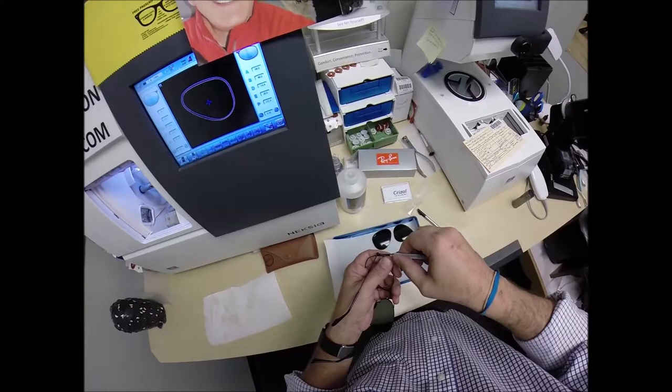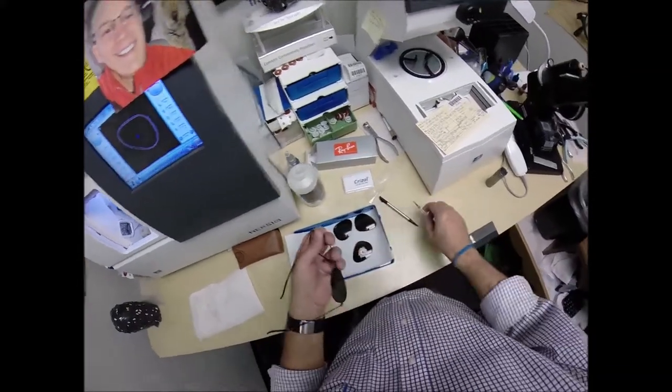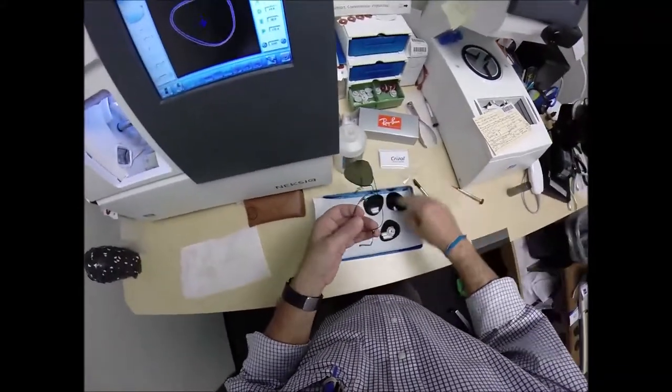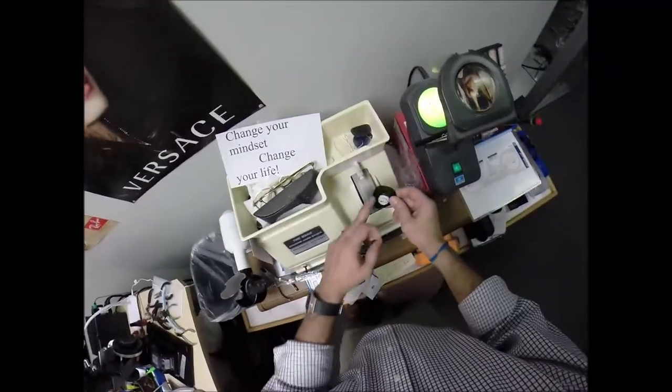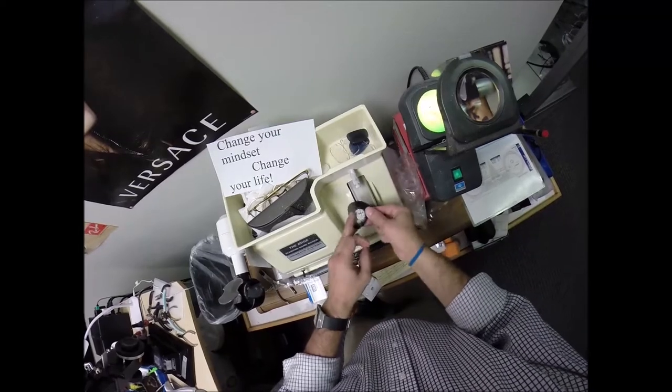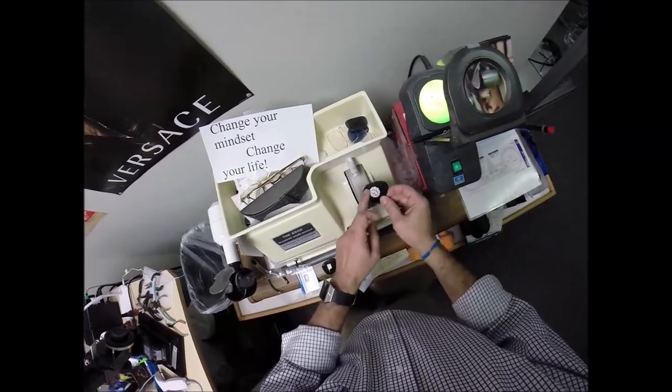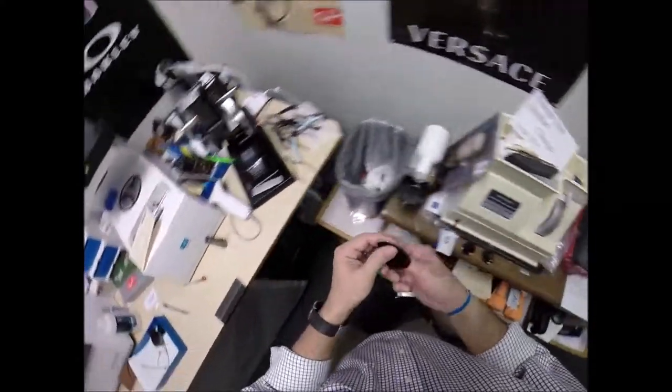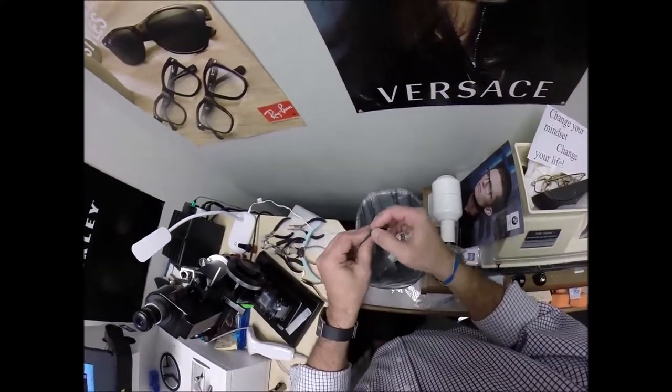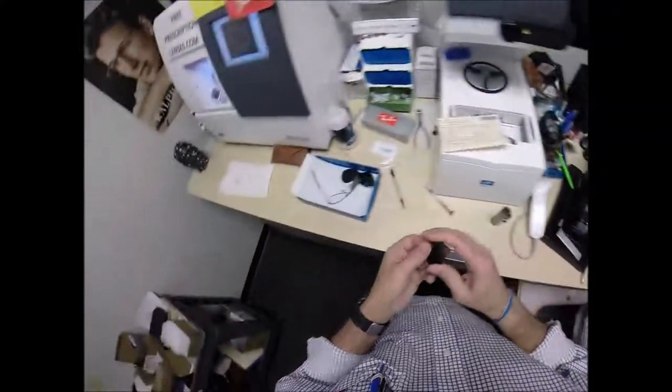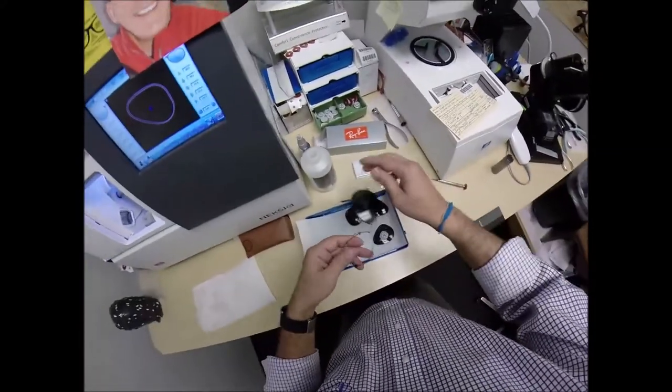Very carefully loosen these screws. Do not drop them. If you drop these you have to bend over get on the floor and look around for them.